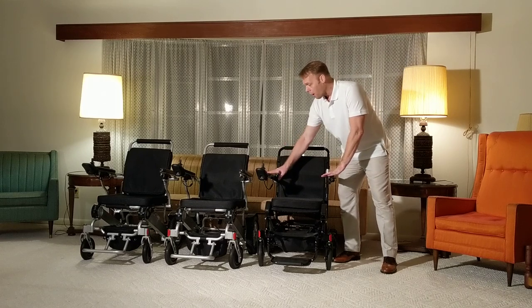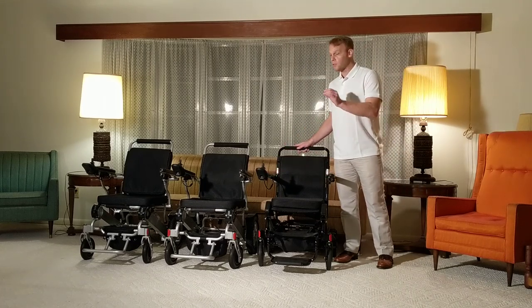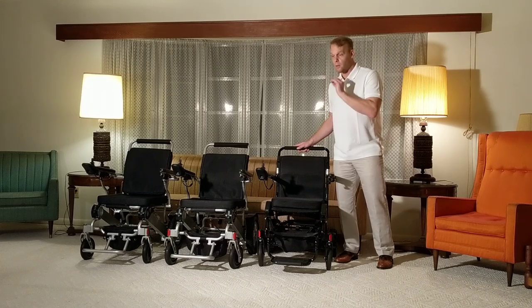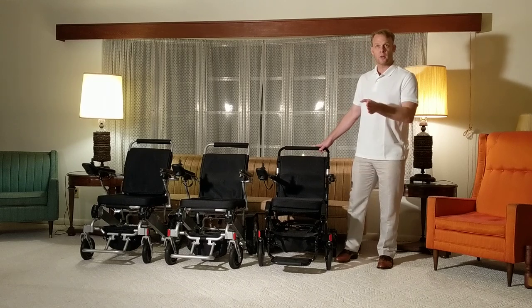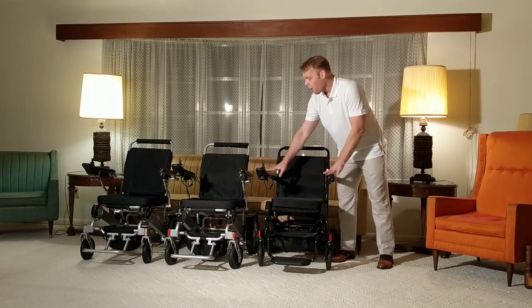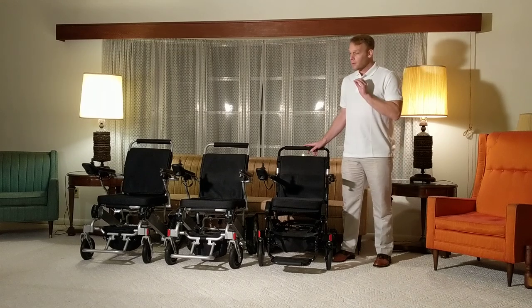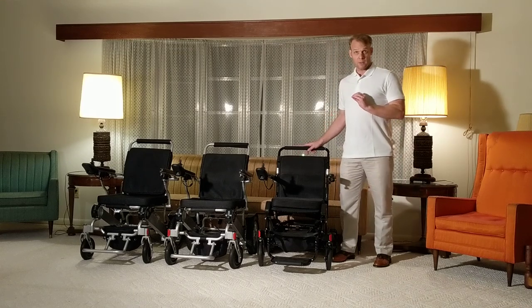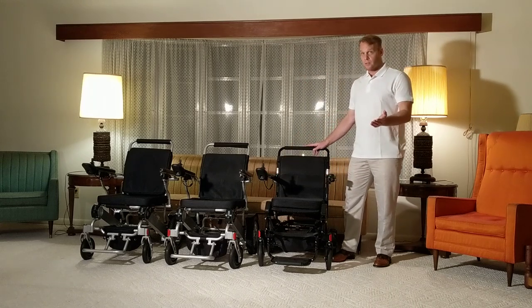Moving forward to the Airhawk — it's probably our most popular chair because the price point is the lowest at $1,987. The Airhawk is available in the US and in Canada, with a slight difference in price for shipping to Canada, but no difference in price for shipping within the United States.